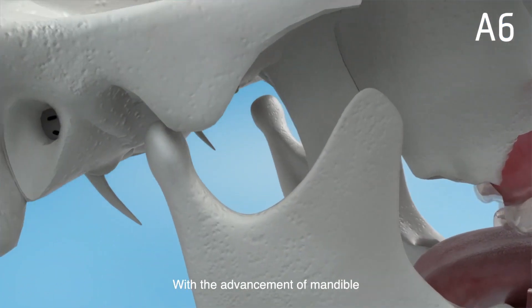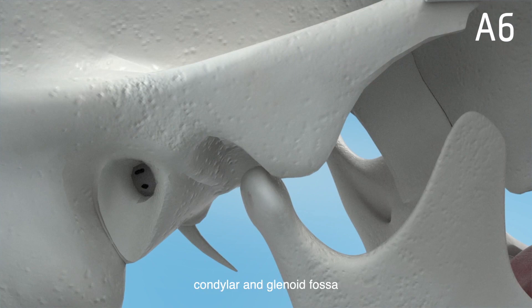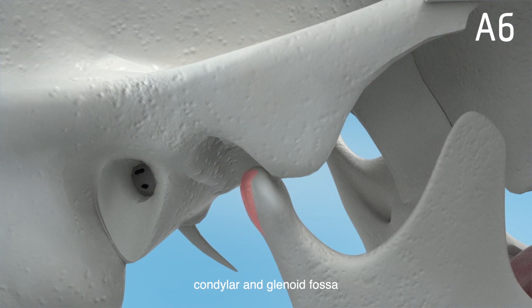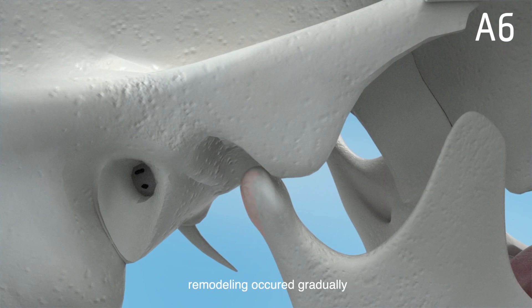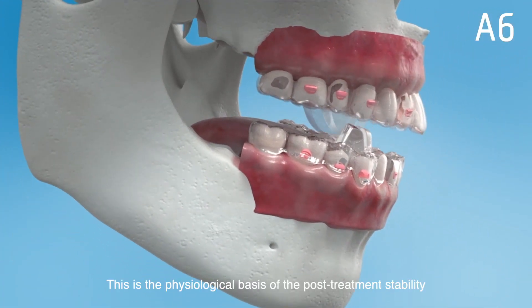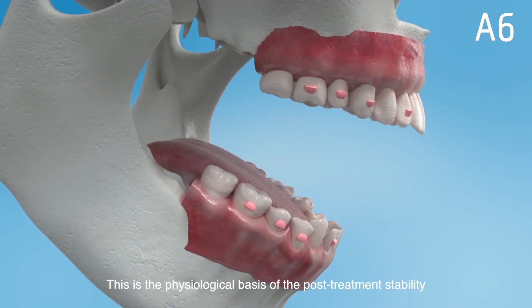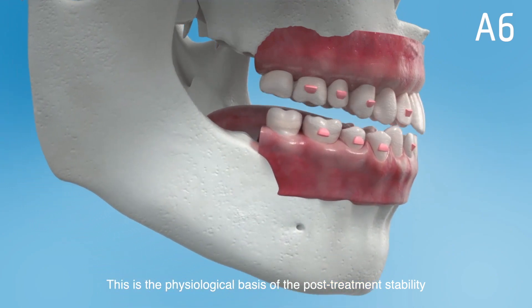With the advancement of the mandible, condylar and glenoid fossa remodeling occur gradually. This is the physiological basis of post-treatment stability.